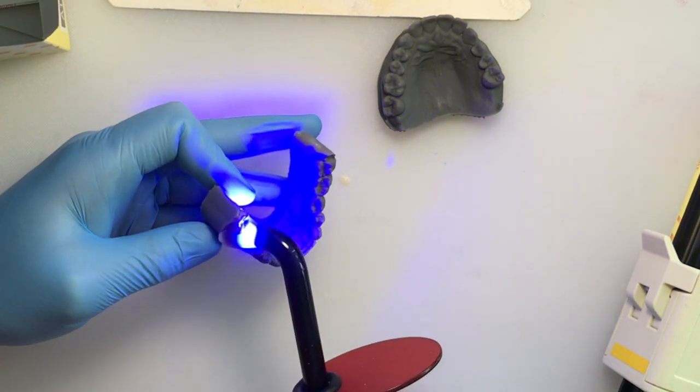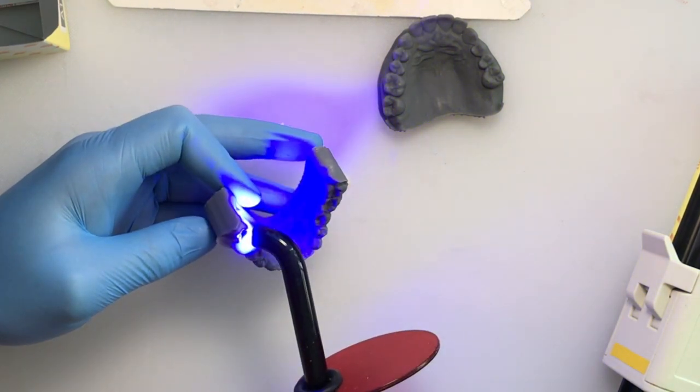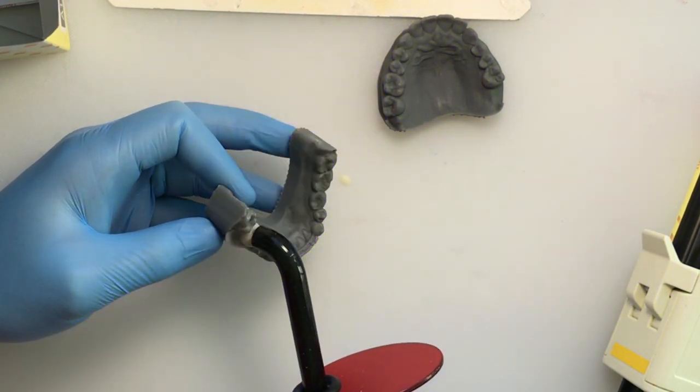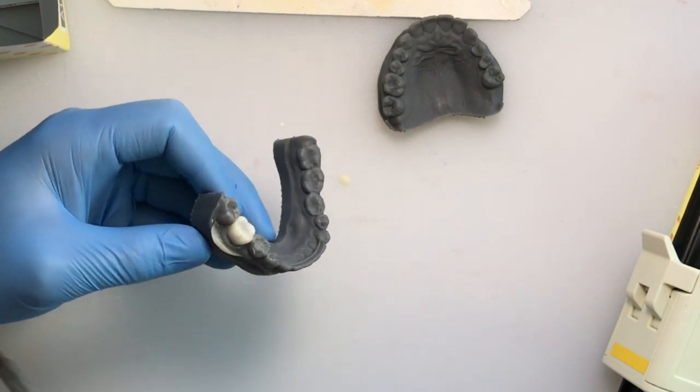We go ahead and cure both sides of the crown, at least five seconds each. One thing nice about this material is it is a dual cure.